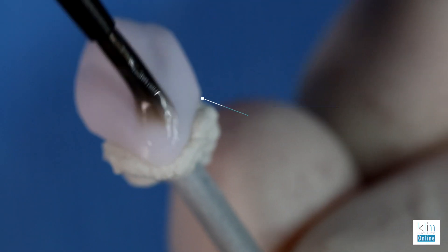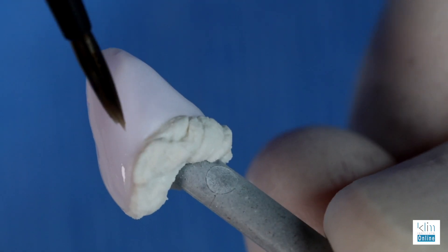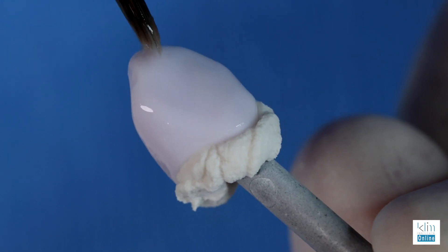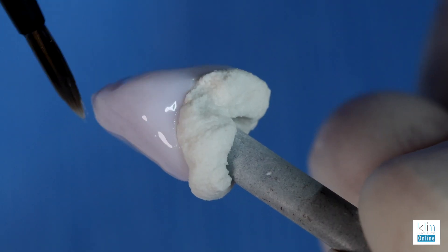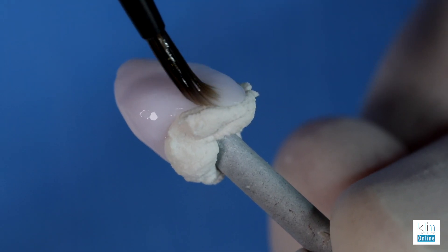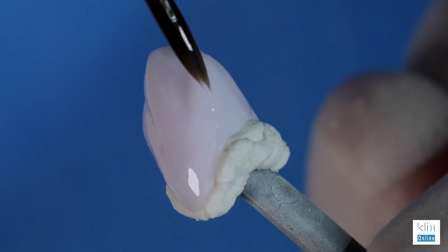The glaze that comes with the Mio 850 is excellent. You mix the jar before you dispense. With the wetting agent, wet your brush. You don't need to dilute the glaze — it pretty much is the right consistency. We'll compare it to latex paint. We don't want to see the brush strokes when we're applying; otherwise it's too thick, nor do you want to make it too thin. When it's used straight out of the jar, it's going to be pretty close to being right on.